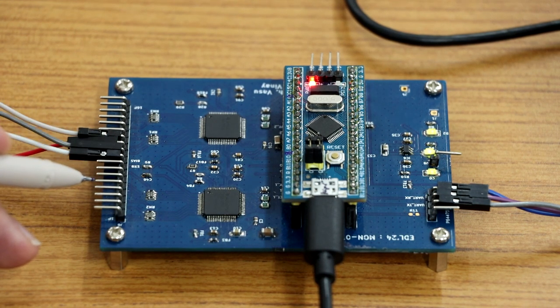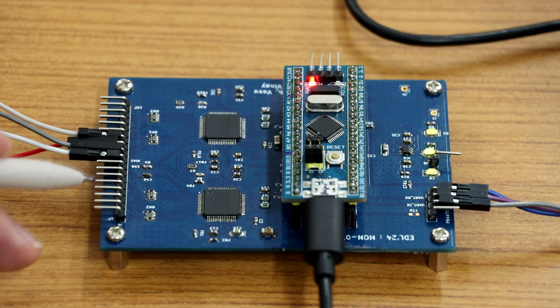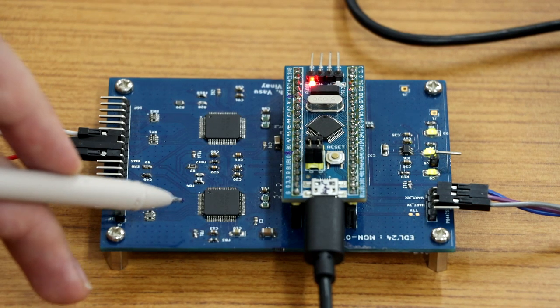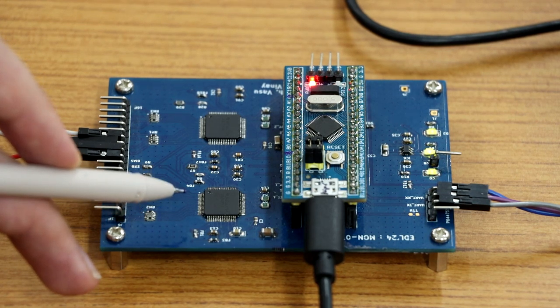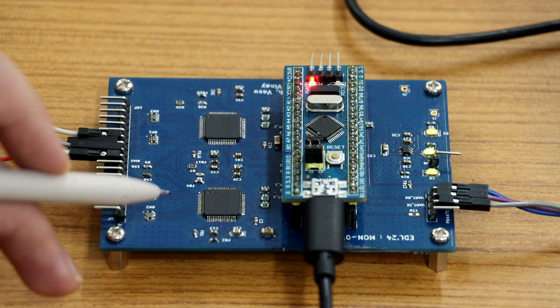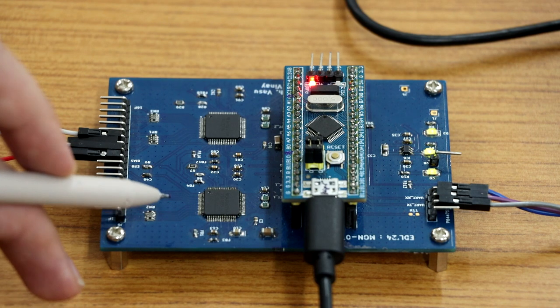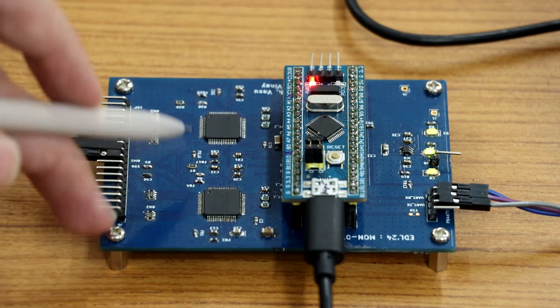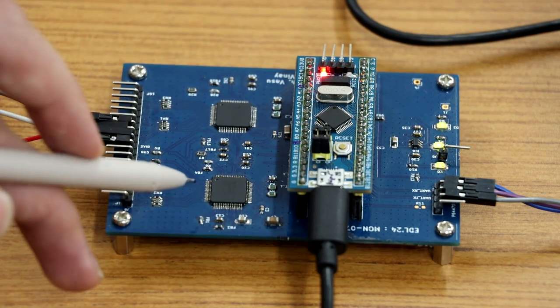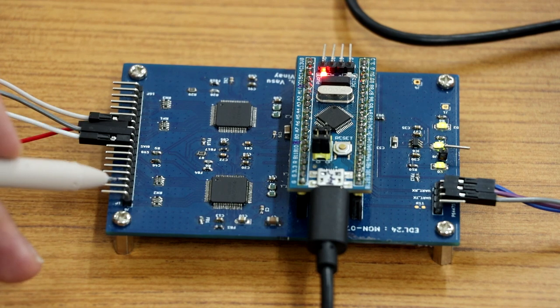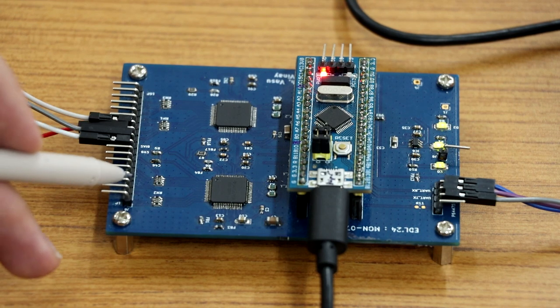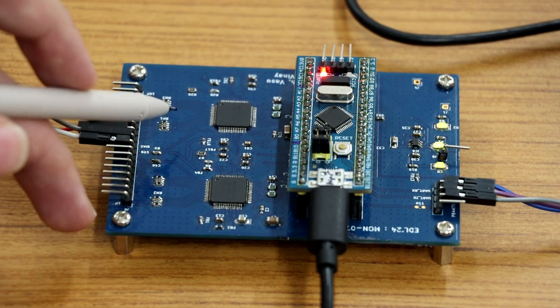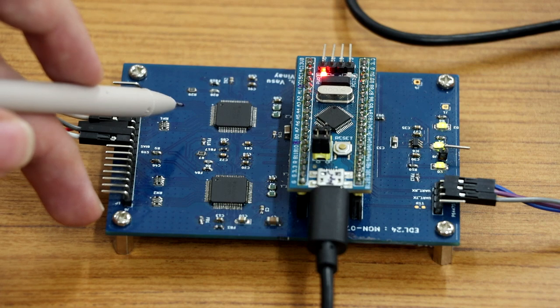The data coming from the headset is analog data and it is sent to the ADC ADS1299. In our low-cost and compact PCB, we have two ADCs which are 8-channel each. So the 16-channel data is sent—8 channels to the first ADC and the remaining 8 to the second.